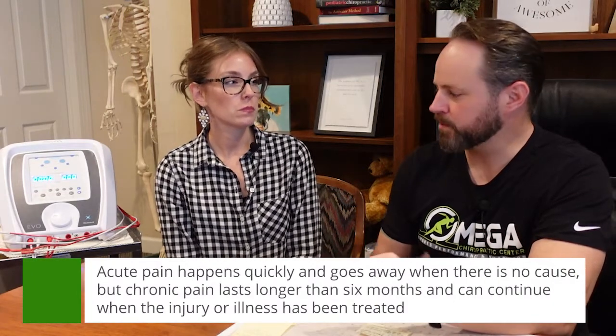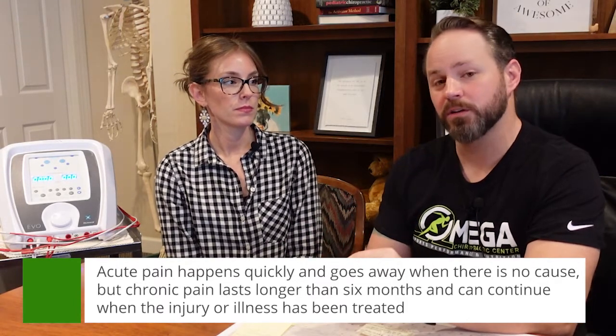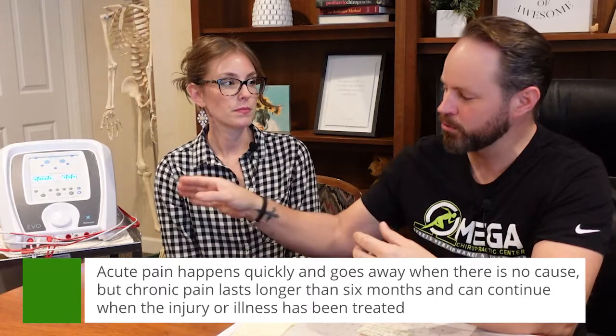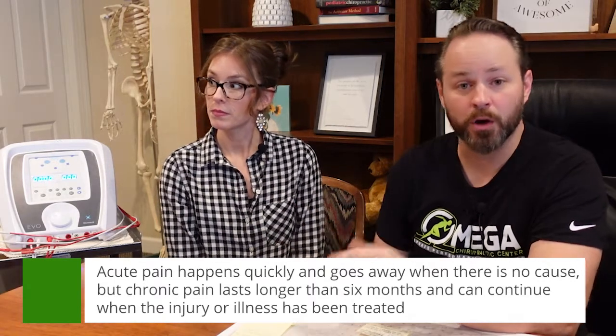Now we would say, what's the difference between an acute injury and a chronic injury? What does acute mean? Typically, it's recent. So you sprain your ankle, you want to put some type of electric stim on there to decrease the pain. They've gotten drastically better with the technology over the past, say, 5-10 years, where you can have different settings with different frequencies built into the actual machine to really focus on inflammation or pain or stimulate healing.